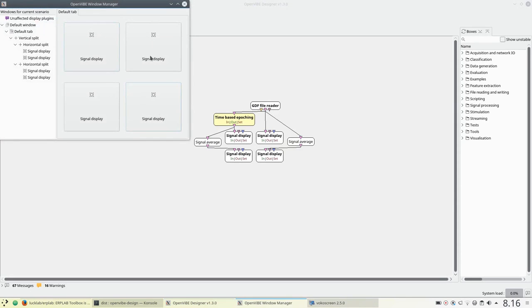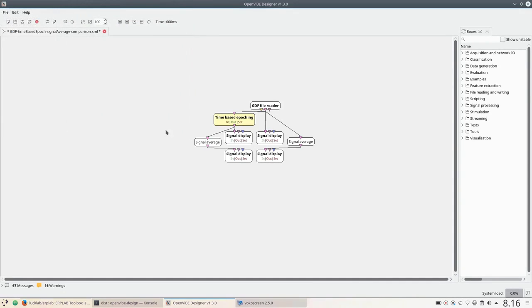And I just put them on this grid here that essentially matches the box layout in the designer view. Okay, well let's go ahead and take a look.